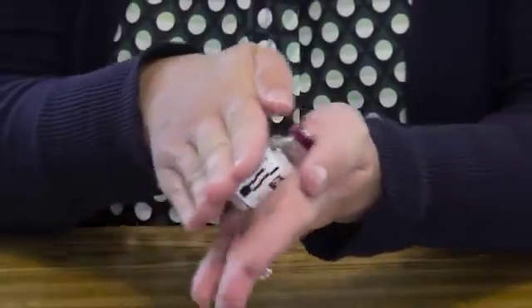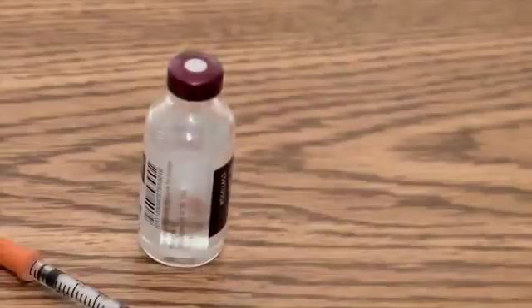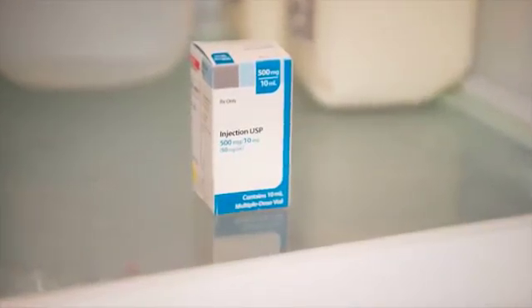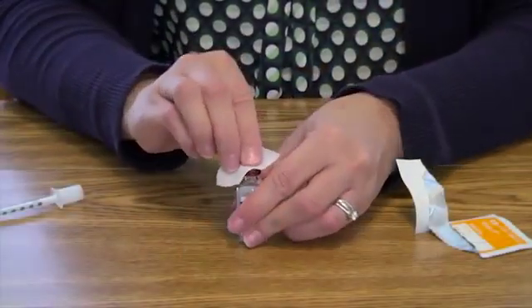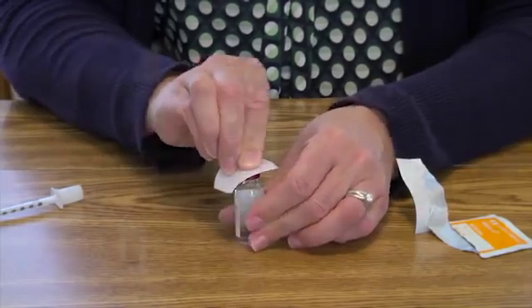If the bottle of insulin appears cloudy, roll the bottle in your hands and turn it from side to side for 1 full minute. You do not have to roll the bottle if the insulin is completely clear. Do not shake the bottle. If opening a new bottle of insulin, remove the plastic cap and wipe the top of the bottle with an alcohol wipe. If using a bottle of insulin that has already been opened, you will still need to wipe the top or rubber stopper with an alcohol wipe.